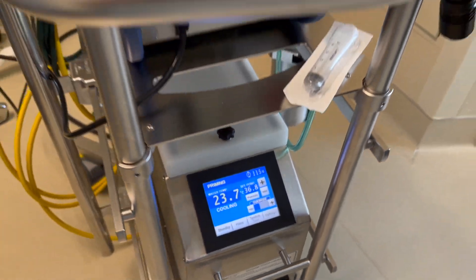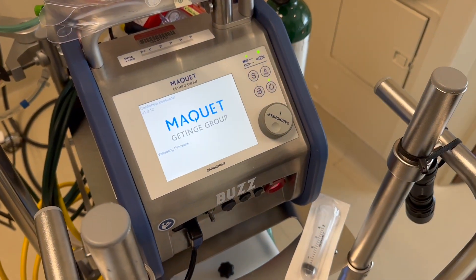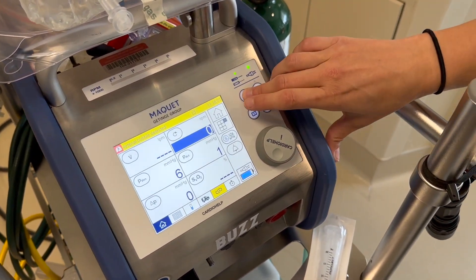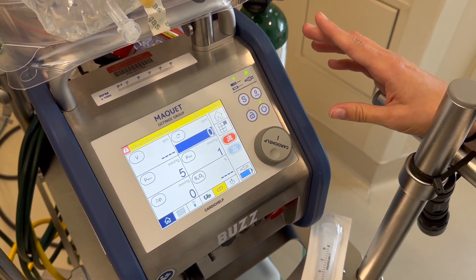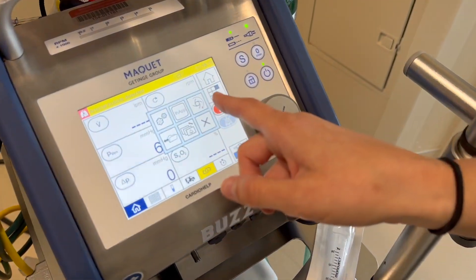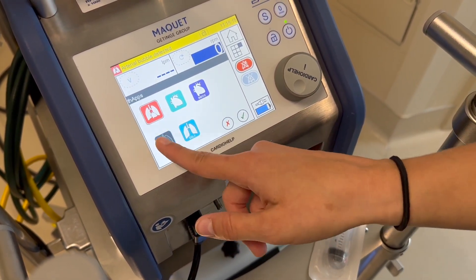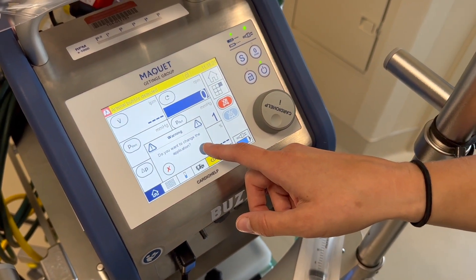Now we're ready to turn on our cardio help machine. You're going to power it on and activate the global override by hitting your S and your triangle. Once you're in global override, you're going to select the appropriate app for your patient — hit your grid, then the app, and select what works for your patient. We're going to do VV for this patient. Confirm with the green check mark.